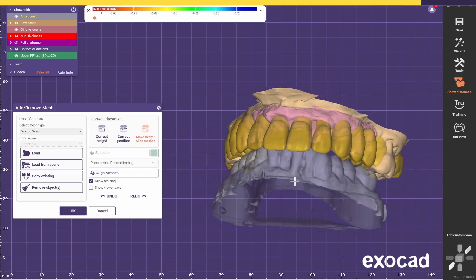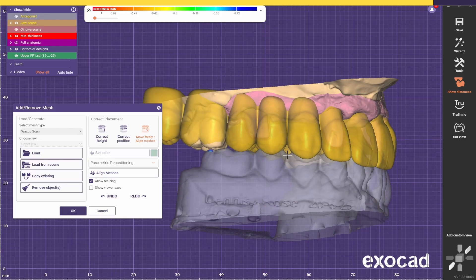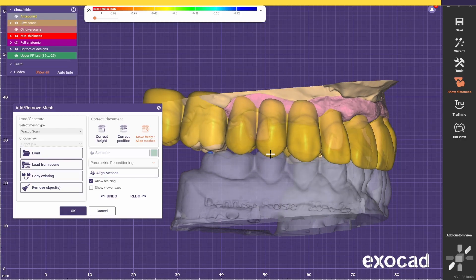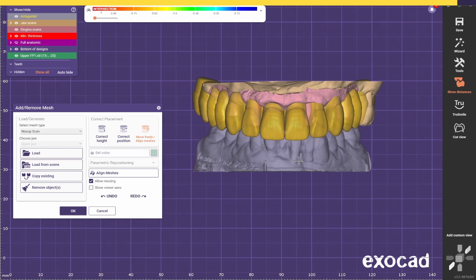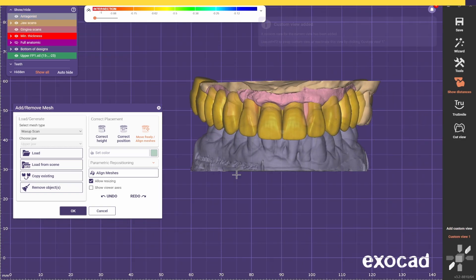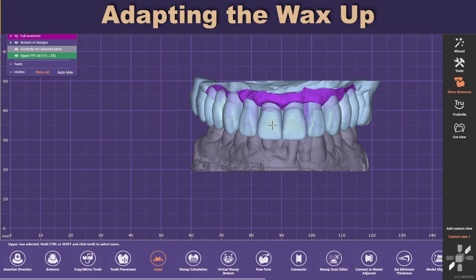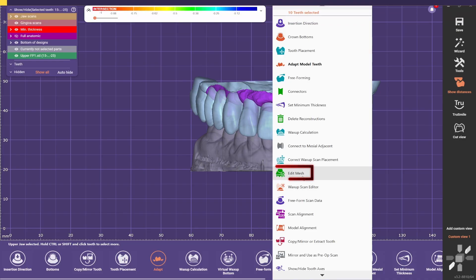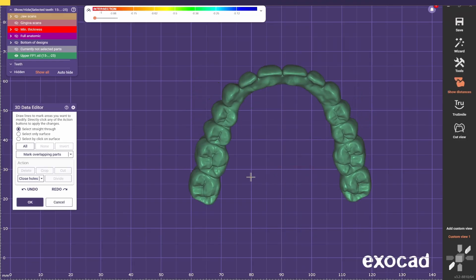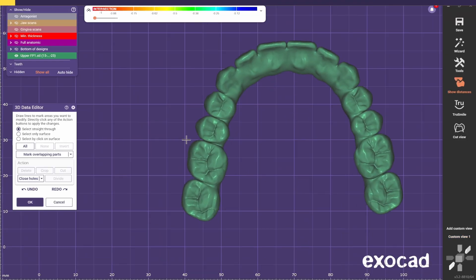Now because the client only wants 10 teeth, the occlusion is not the most ideal — you can see these open gaps. But I don't think we have any other solution. After you are happy with the positioning of the bridge, you go OK. You left-click on the Waxup, right-click on top of it, and go Edit Mesh. Because you're going to have to remove some of the teeth that we are not going to use, like the molars — just do a box select and delete.